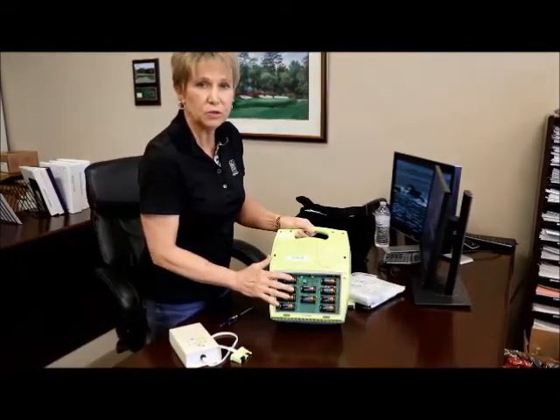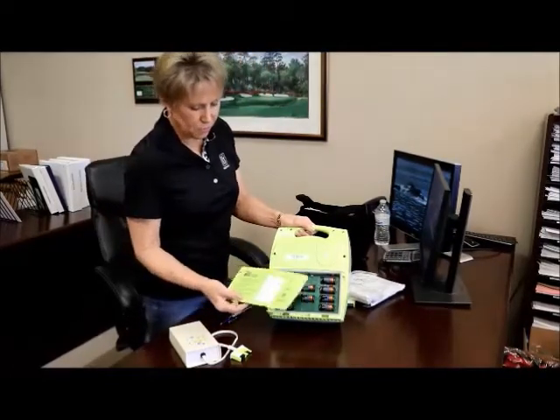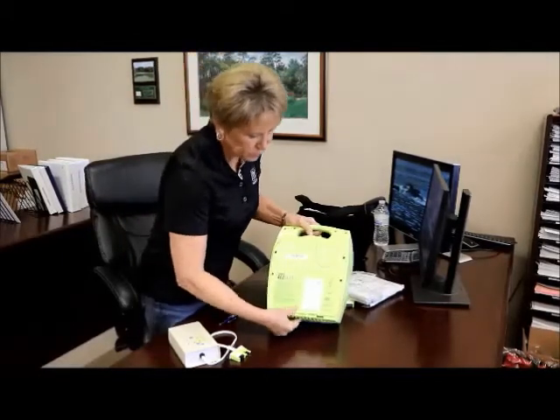There are specific batteries you can use and you cannot use quite a few of the other brands. If they don't have Duracell, you need to note what brand of batteries they are.